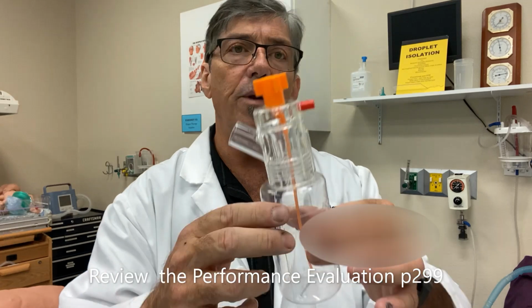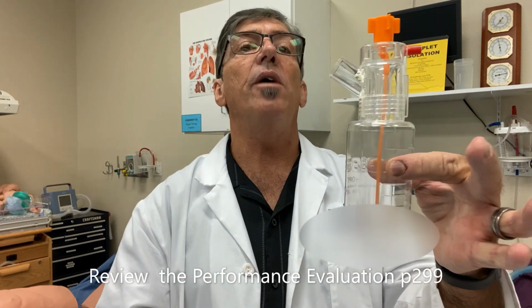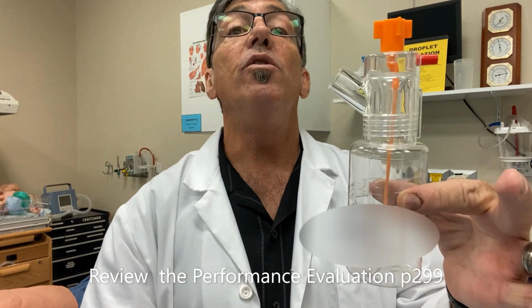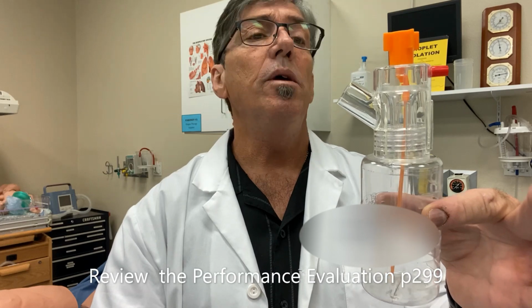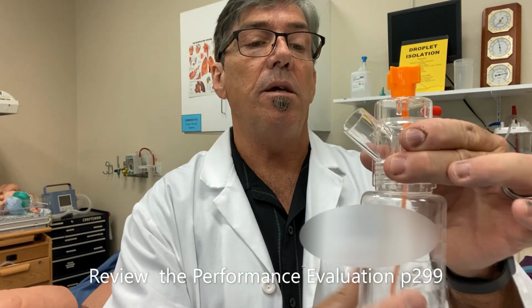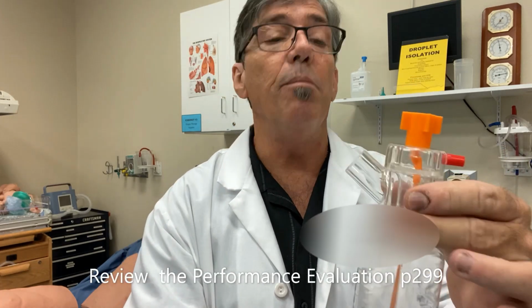But today we're just going to look at a very simple system, a continuous aerosolization of medications with the Hope nebulizer. All right, everyone, here is the Hope nebulizer. It's somewhat of a large volume nebulizer, kind of a specific use designed to deliver continuous medication. As you can see, it can be connected to a flow meter on a blender, so that's recommended.